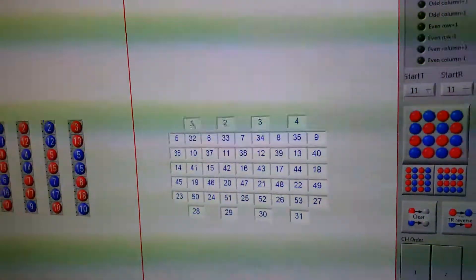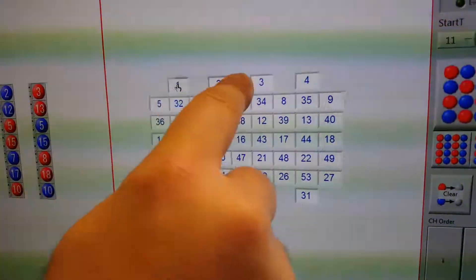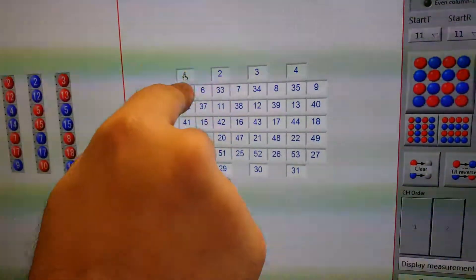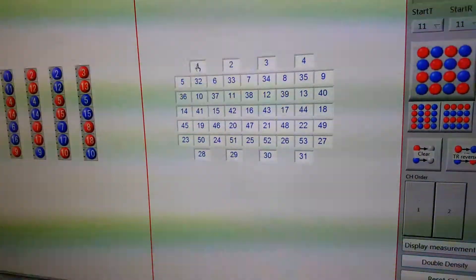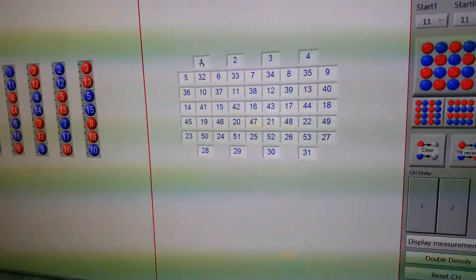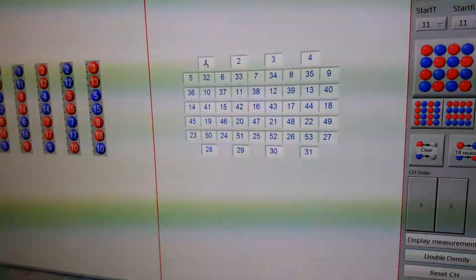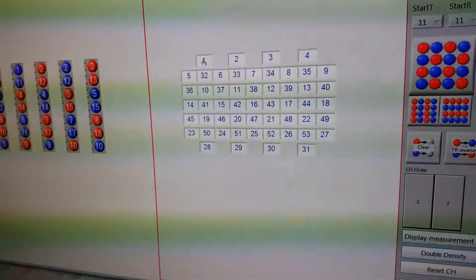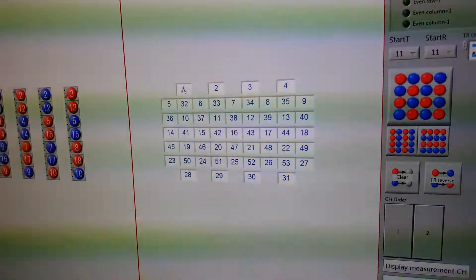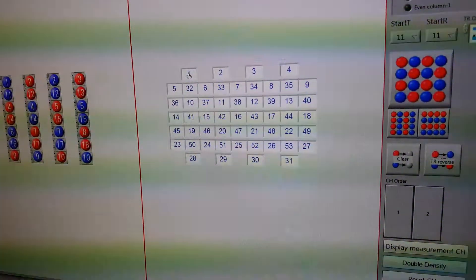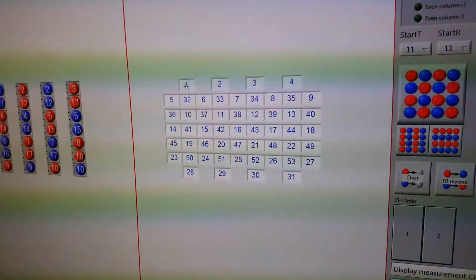And you'll see that now what we have is we have channels that are three centimeters apart and channels that are one and a half centimeters apart. So theoretically with development of future algorithms you should be able to do some tomography on this type of information with two layers, with two depth layers.